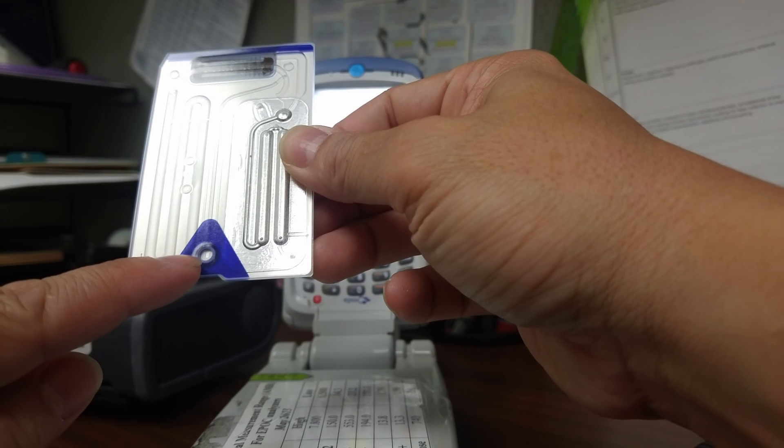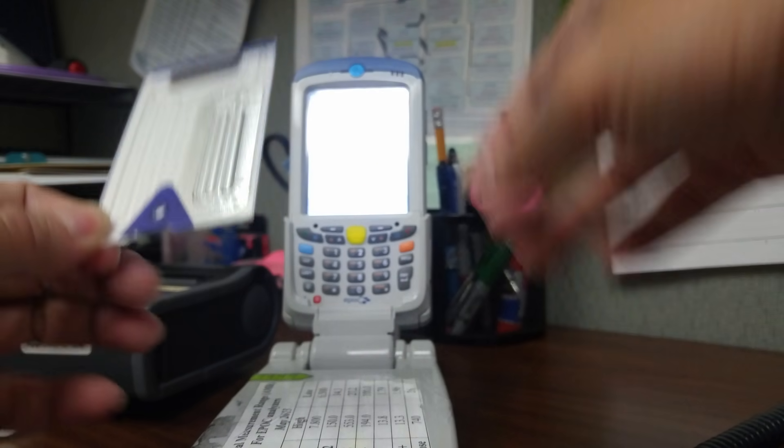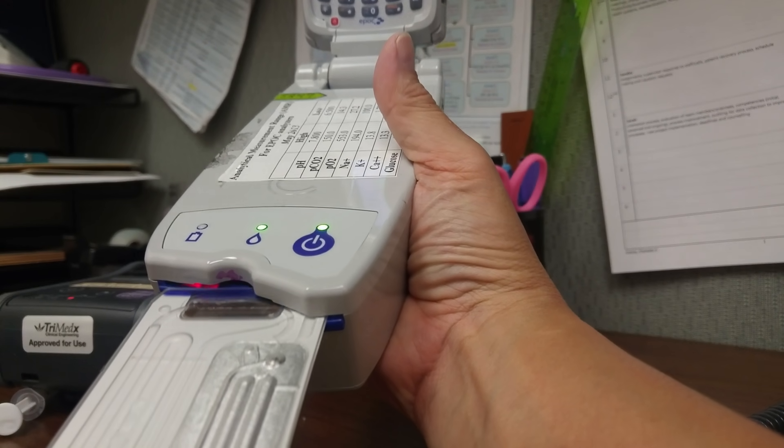Okay, so first thing you want to insert the card into the base, like so, so it can calibrate the card. You can inject your sample.